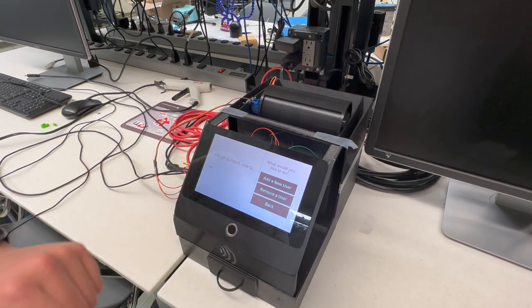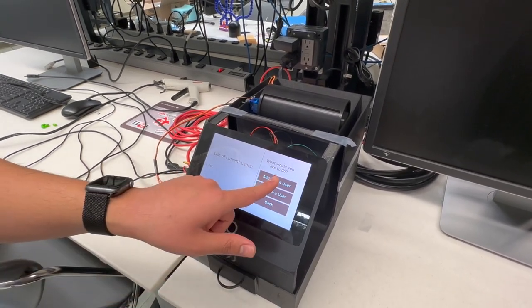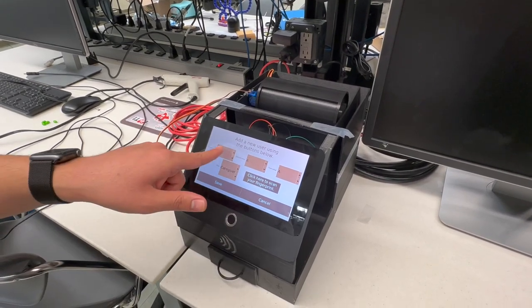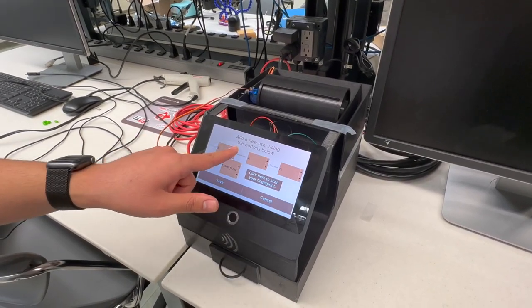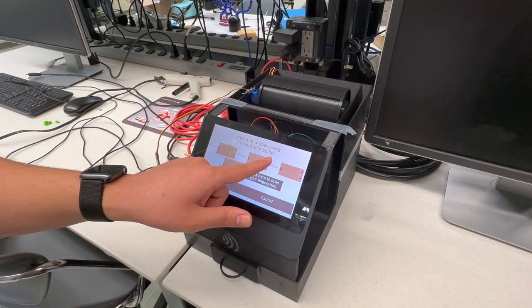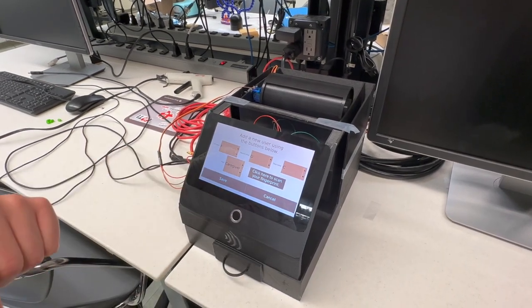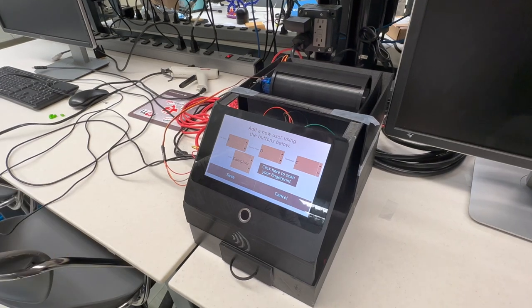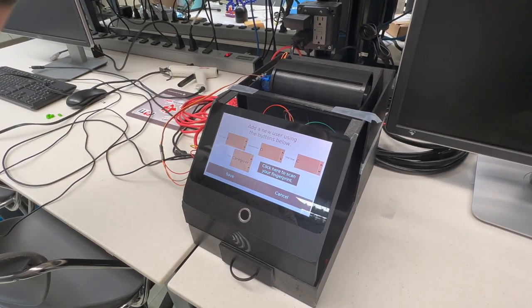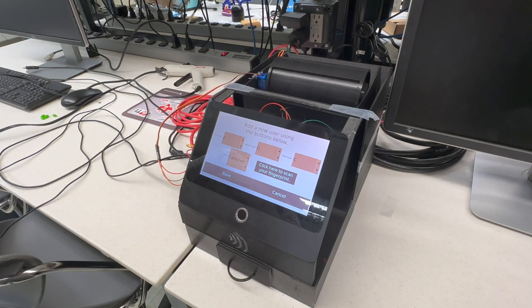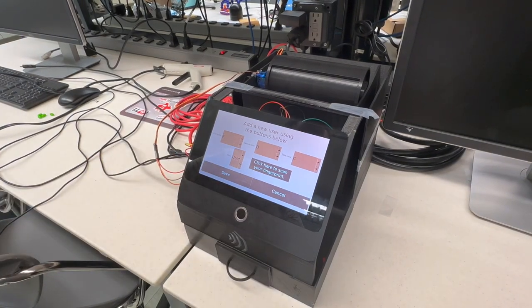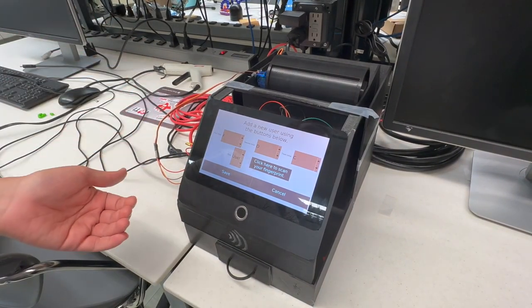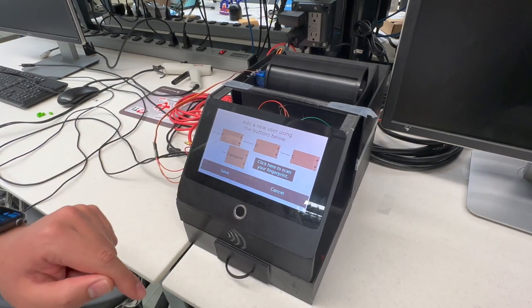For now let's just add a new user. Click add a new user, and in this submenu all you have to do is select your first three initials using these buttons like so, and then you can select one of either two roles. Either caregiver, which has full access to all the functionalities including refilling the medication chambers, or you can be a user which only gives you access to the dispensing function. For now let's just stick with caregiver.